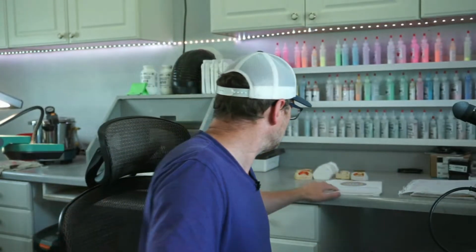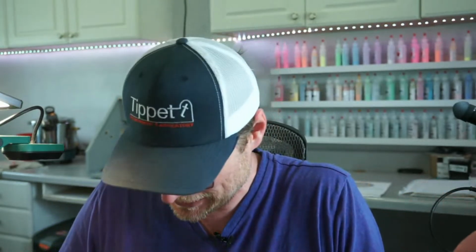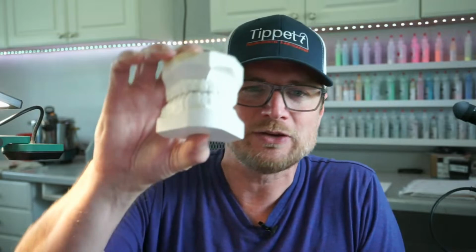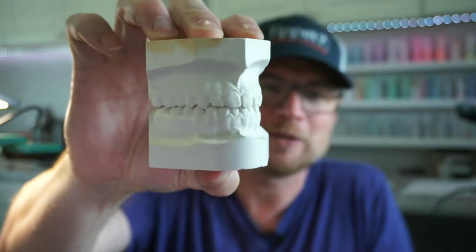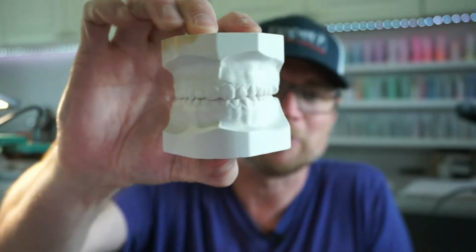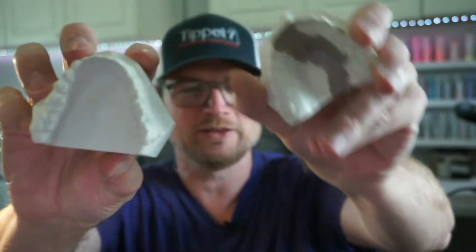And so what you have to do is, once you sign up for the exam, you get those models in. You'll get the exam papers in, and I have a few screenshots of my old exam from 2003 when I took this. So I've had my CDT for 21 years. You pour up those models, and you have to make a set of study models. Now it was in storage, so they're a little beat up. But how many of you remember study models? You can see I got some schmutz on there, but they're soaked and everything.